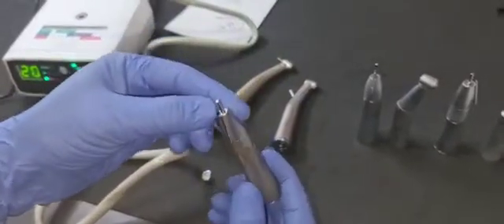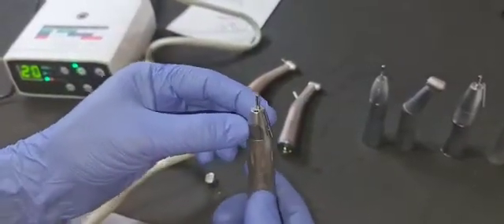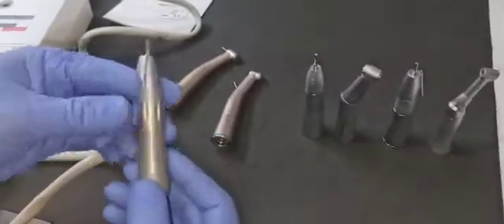This is a straight surgical with inner and external water fiber optic straight handpiece. This also can be used with this.